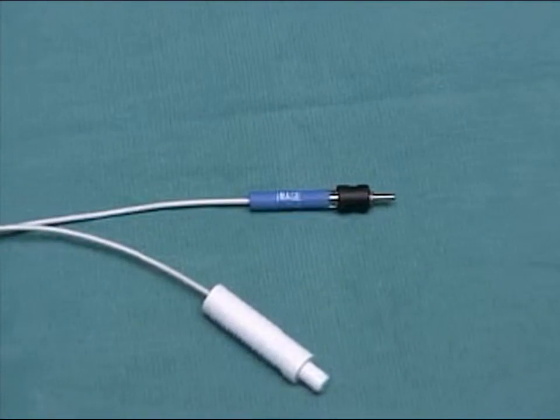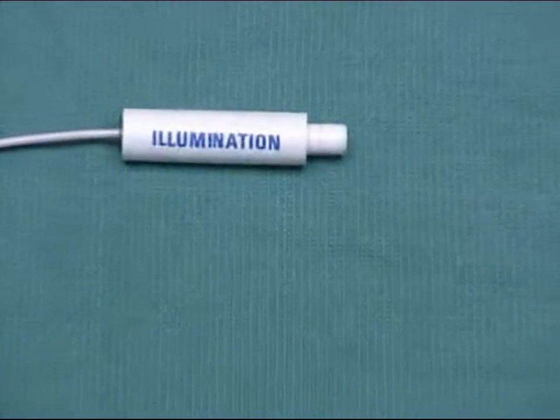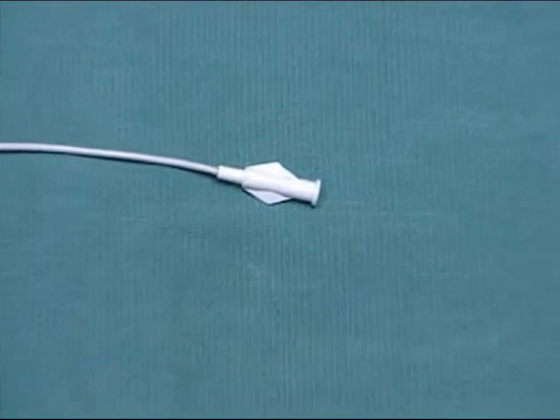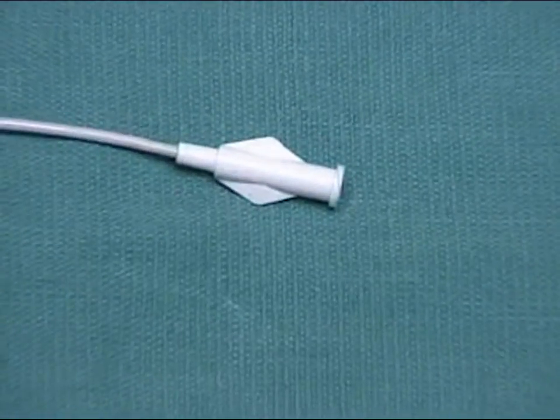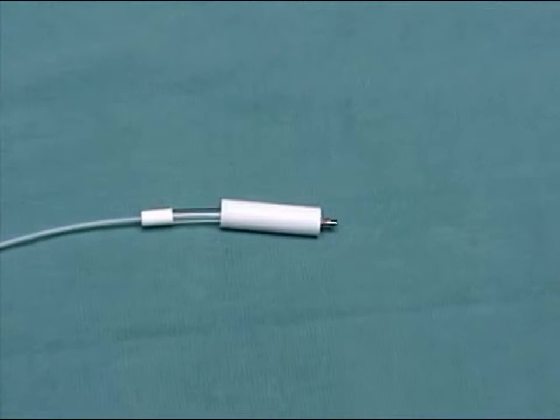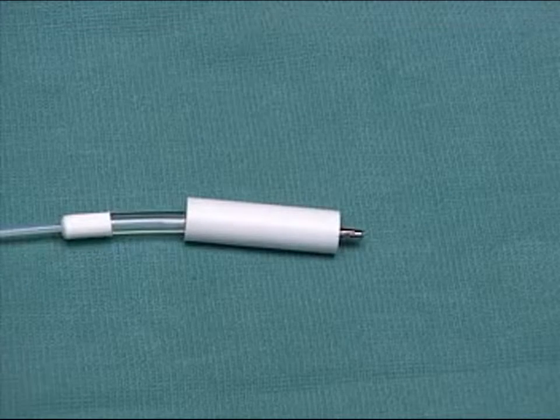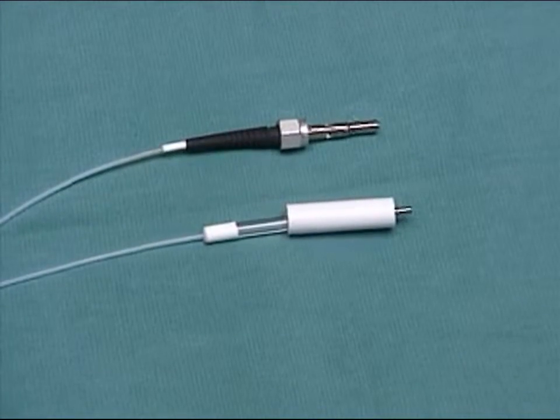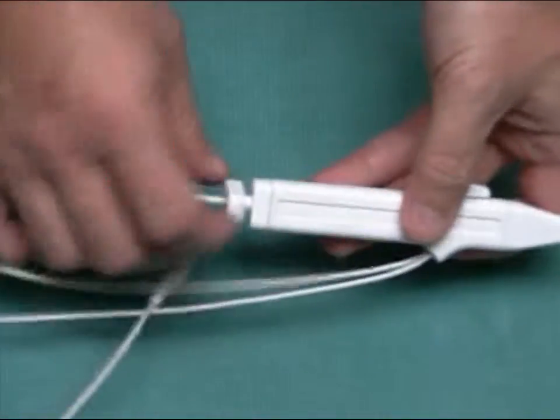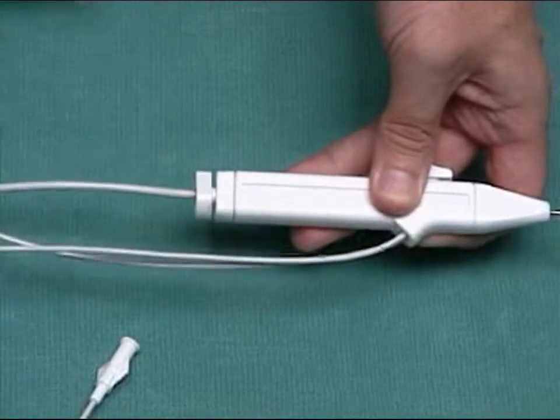The image connection provides a video picture. The illumination connection provides light to the endoscope. The irrigation line provides saline solution for cooling. The laser fiber is connected to a Holmium YAG laser. Two LASE kit models are available — one with a Coherent brand laser fiber connector and the other with a Trimedyne brand laser fiber connector. Using the knob, you can position the laser fiber from one to six millimeters from the endoscope's distal end.